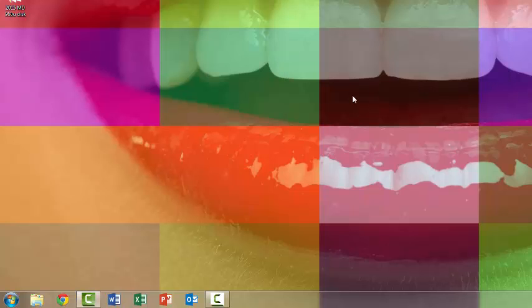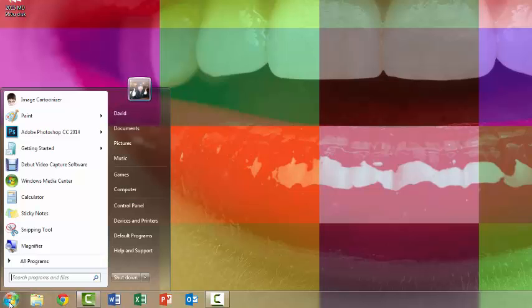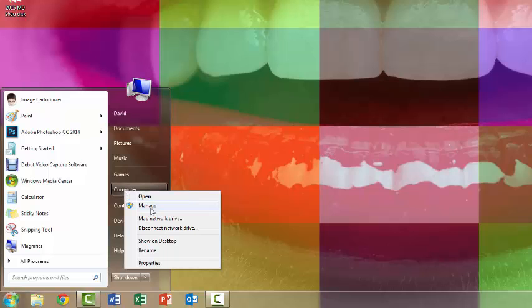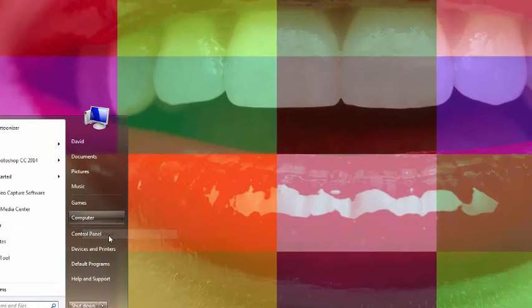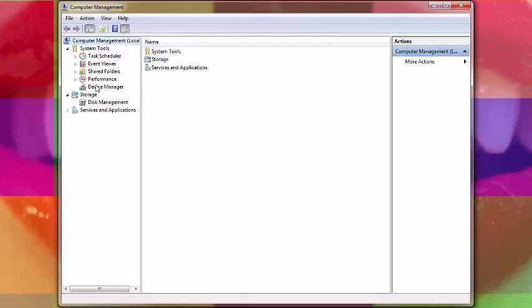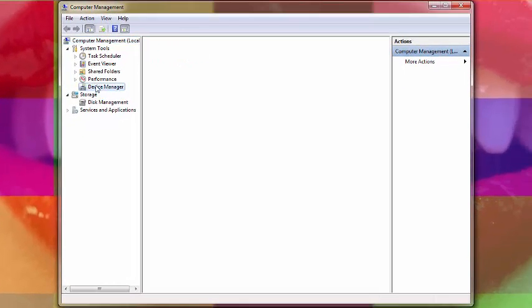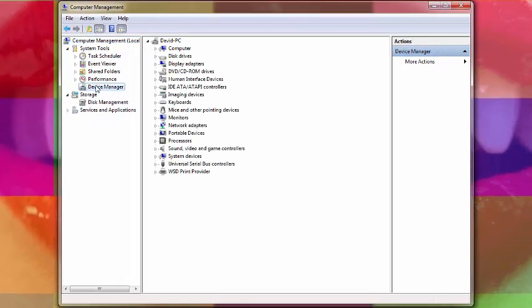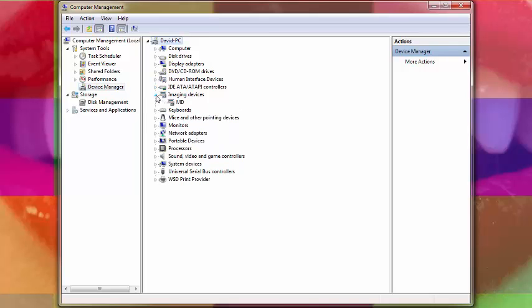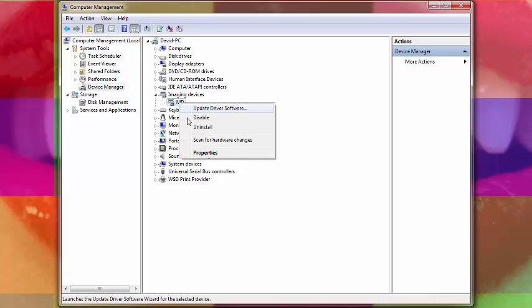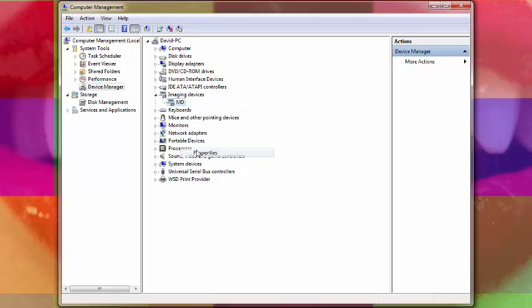That is the key to tell that the driver has been installed. And now we can check it. If you click on the Windows 7 button, right-click on Computer, select Manage, go to Device Manager, and then you're going to select Imaging Devices. And you can see there it is. The MD has been installed properly.